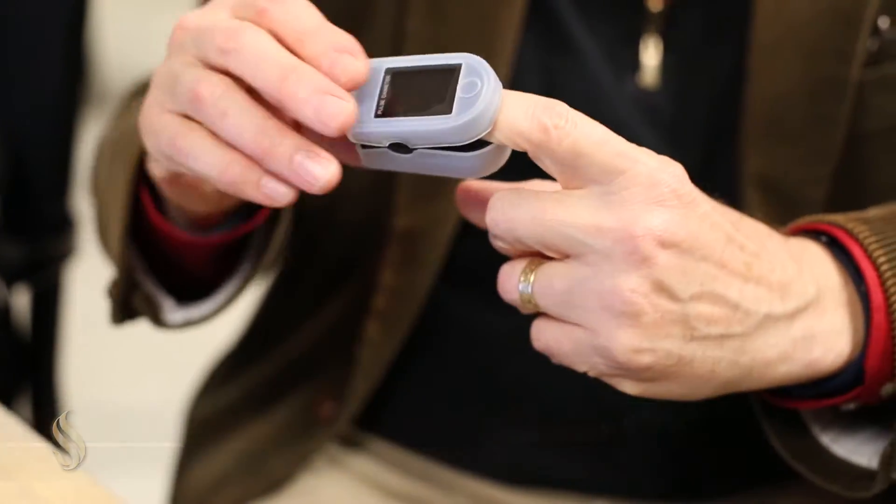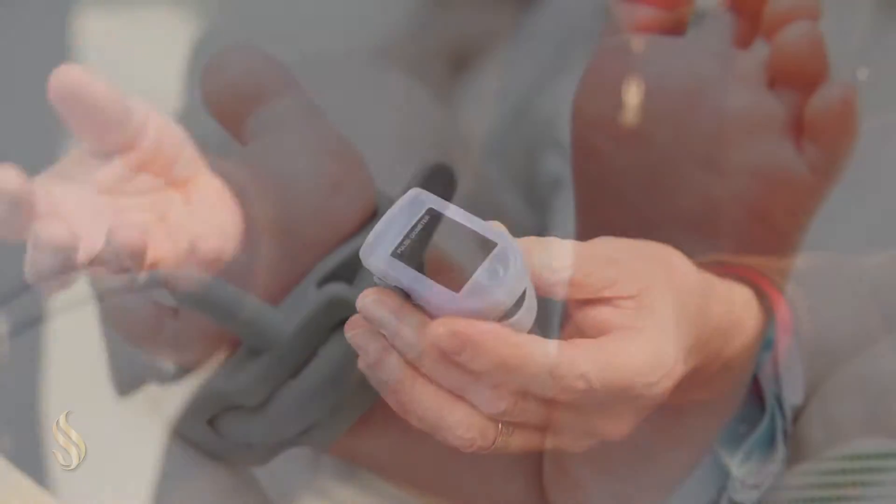Maybe you've seen these in the hospital, these are put on a patient's finger called a pulse oximeter.